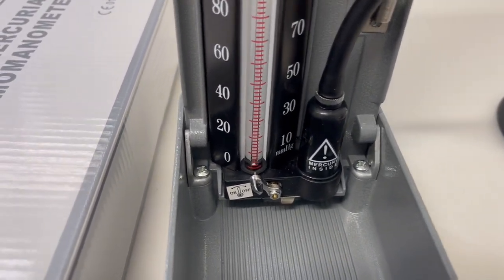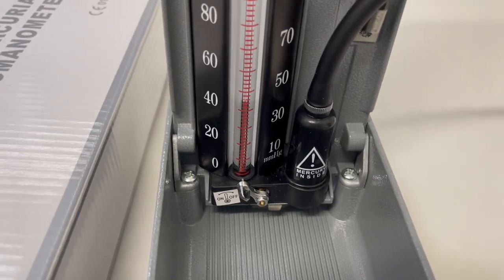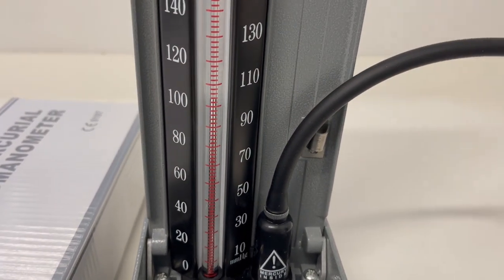Tilt it back up, mercury pops up, and as you inflate you should see it actually rise without any gaps in the mercury and being 100% accurate.